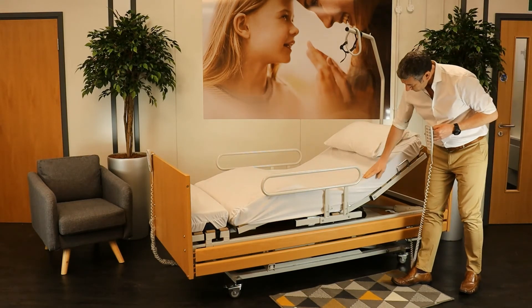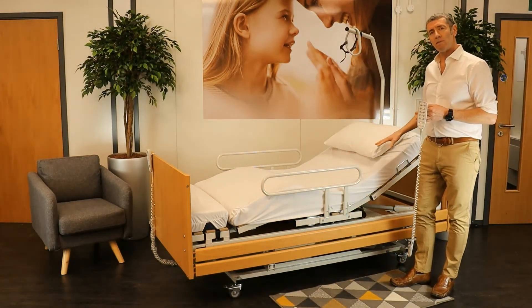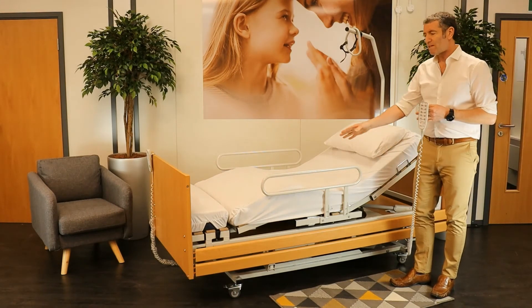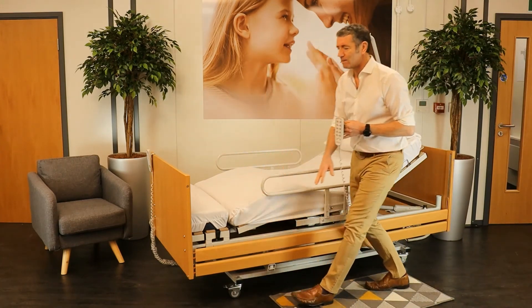What we've got here is the headrest, back, knee and leg. These have been set into a specific position to suit the user. This one has been set, for instance in my case, to fit me if I was to lie on the bed.